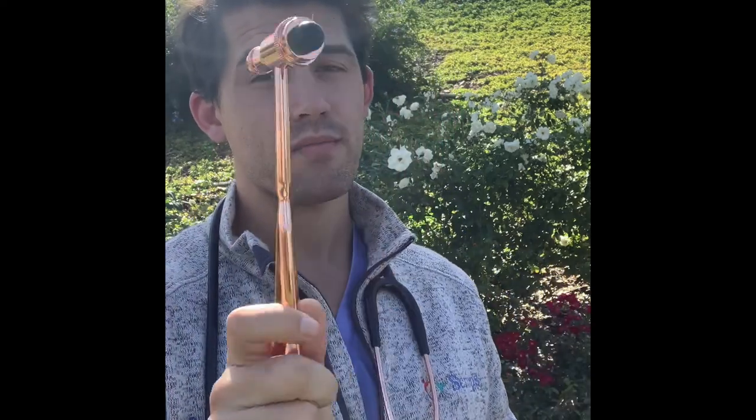That means checking all the basic reflexes, and that's why I've got my MDF hammer that can help check the reflexes on upper and lower extremities, bilateral of course. And then on the backside of the hammer, I use this to check a Babinski reflex.